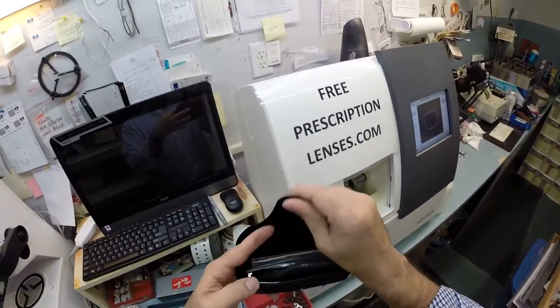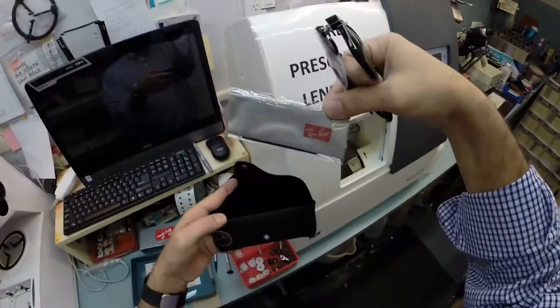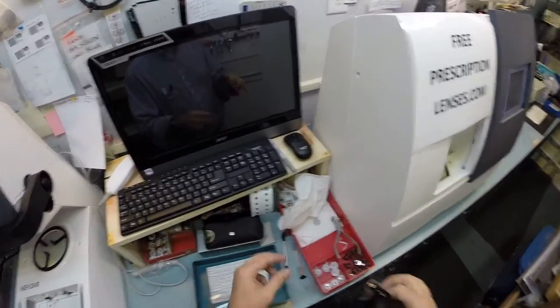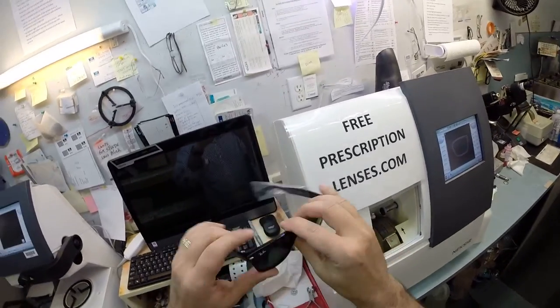So let me take it out. This is your Ray-Ban case, your Ray-Ban frame, your Ray-Ban cleaning cloth, and some junk mail because you just don't get enough in your mailbox.